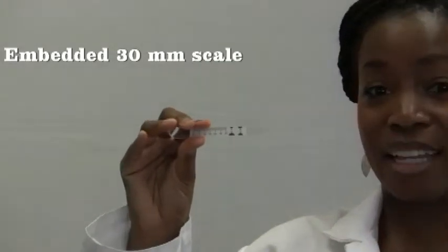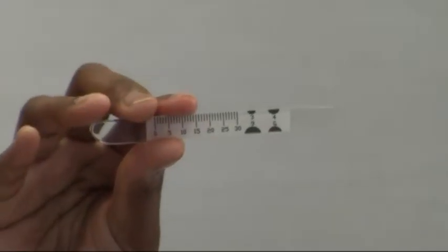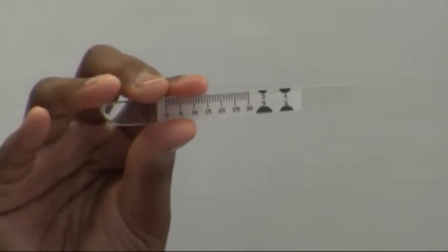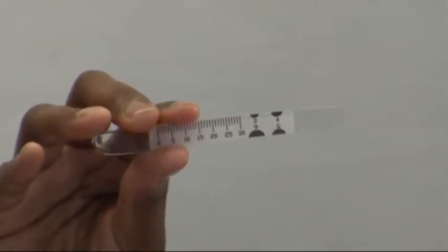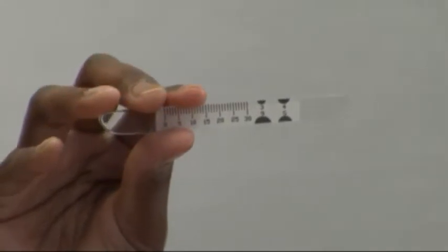With optimal functionality in mind, Dr. Gutierrez has embedded a 30 millimeter scale in the instrument, enabling it to function as a ruler to measure palpebral aperture, iris diameter, proptosis, and the sizes of pterygium and pinguecula.